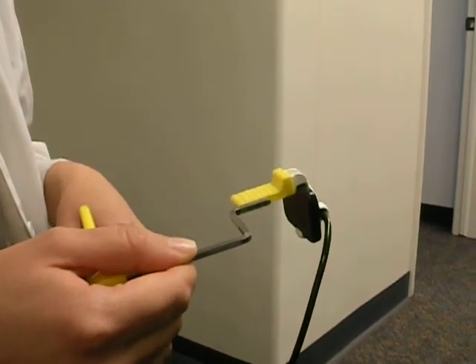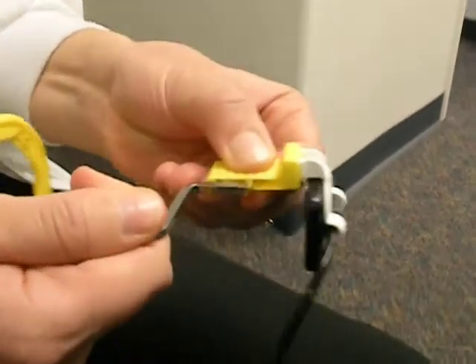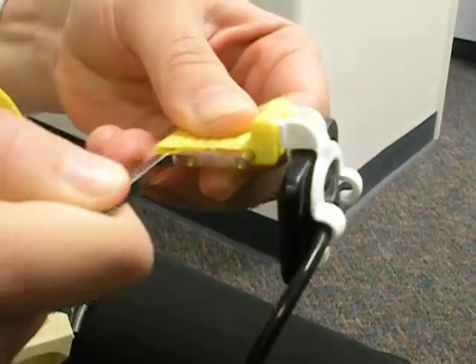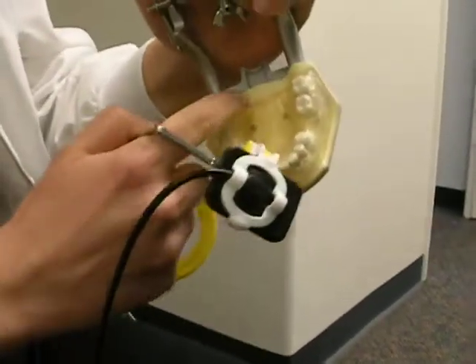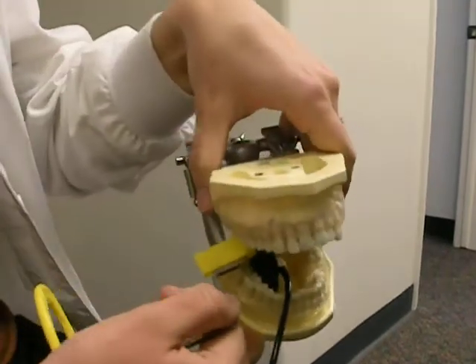One of the tips on your PA is that you may not know that you can actually move the holder. It's a little harder with the bag on there, that's why I'm showing you without it. I think you have to go all the way to the edge — that will get you closer, possibly for a molar shot only. We were talking about that earlier: this tissue right here. You can go a little bit closer and it might not gag them.